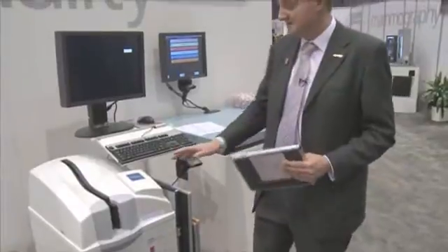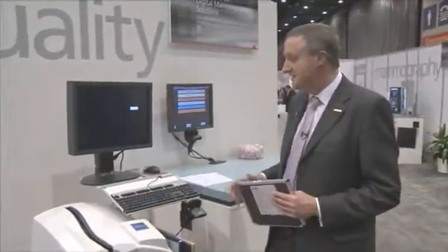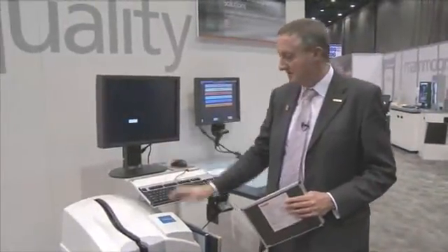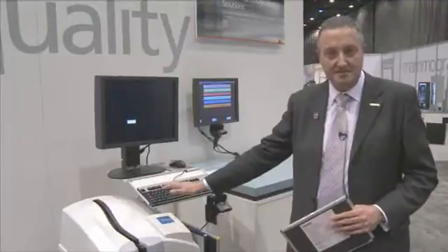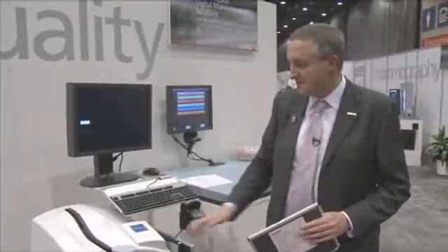The CR system is, as you can see, a very small footprint. It's very low, so even small radiographers can easily put cassettes into the unit each time they do a mammogram. To use the machine, you require the user interface which can either be attached to the CR as it is in this particular case, or you can separate the workstation and put it behind the control panel, because this machine is small enough and unobtrusive enough to be put inside the x-ray room itself.